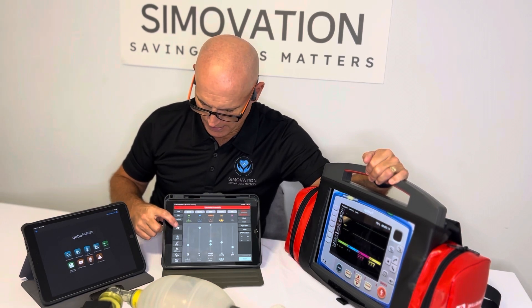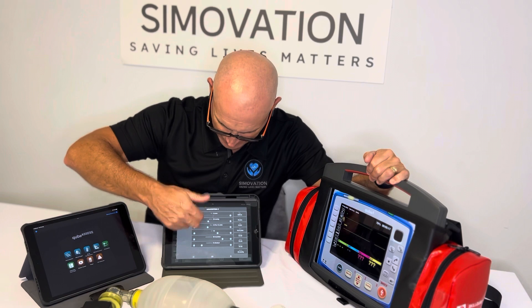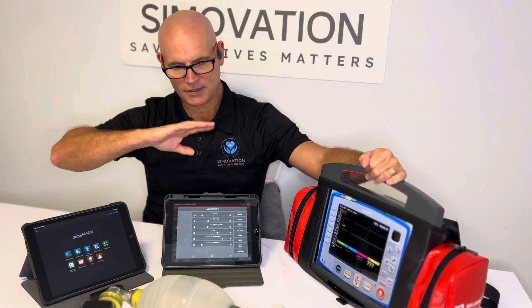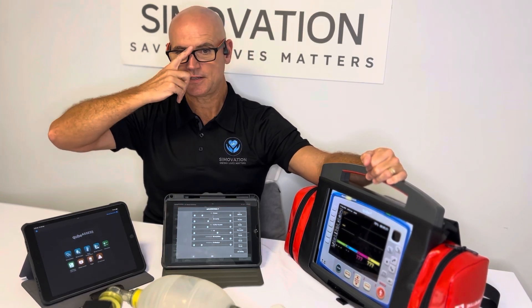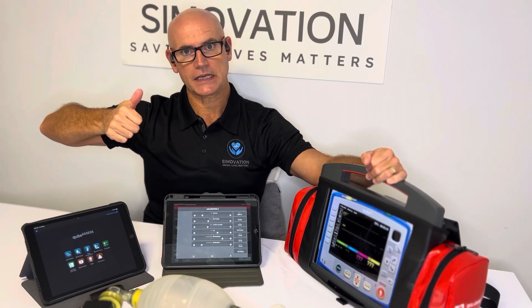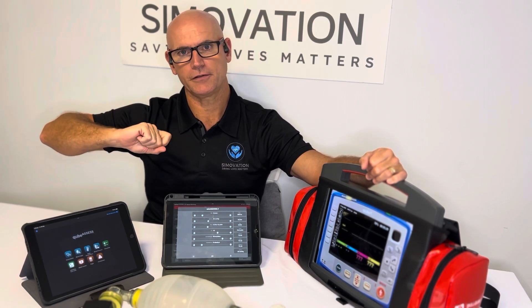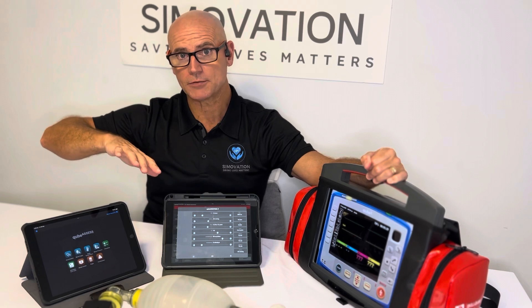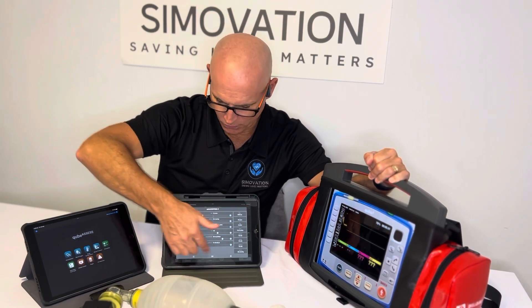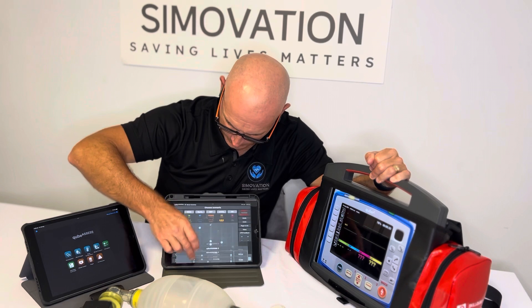The next icon relates to the ventilator. What's really helpful with this CubeSeries system is that you get a generic ventilator skin and also a generic defibrillator monitor skin. I've just gone into the actual ventilation settings.